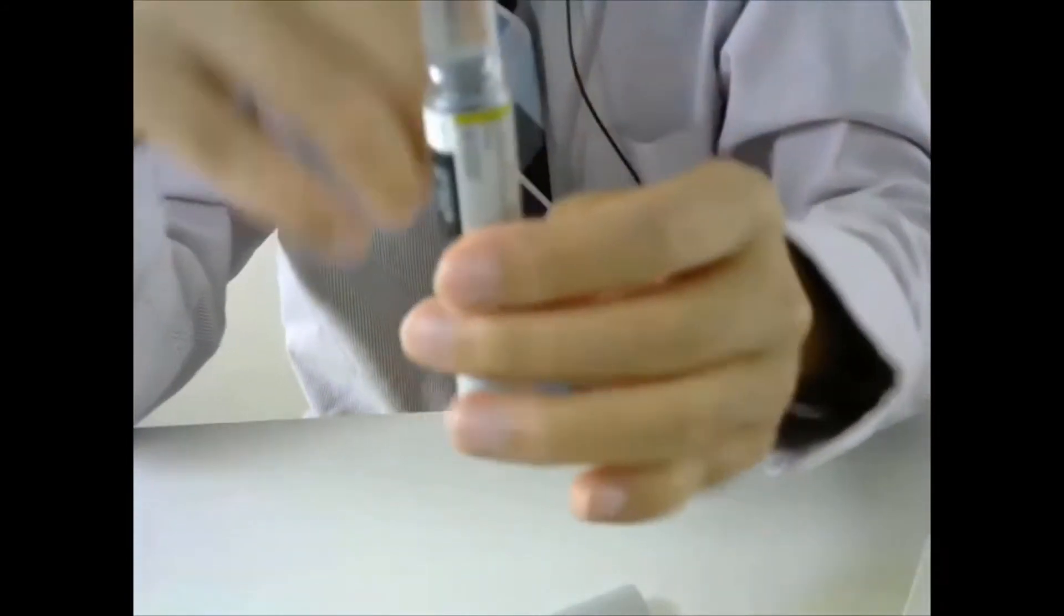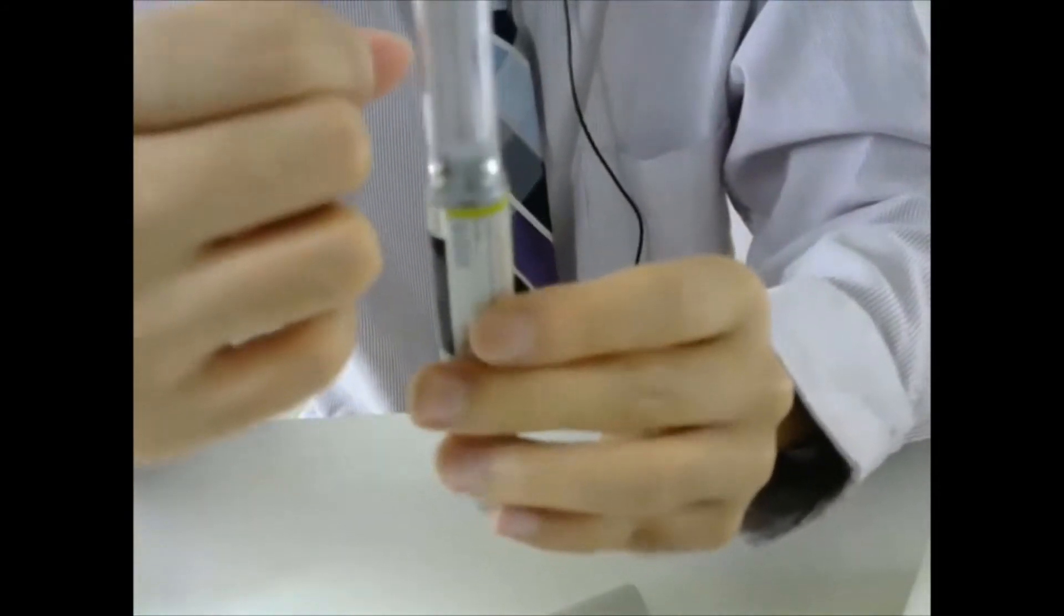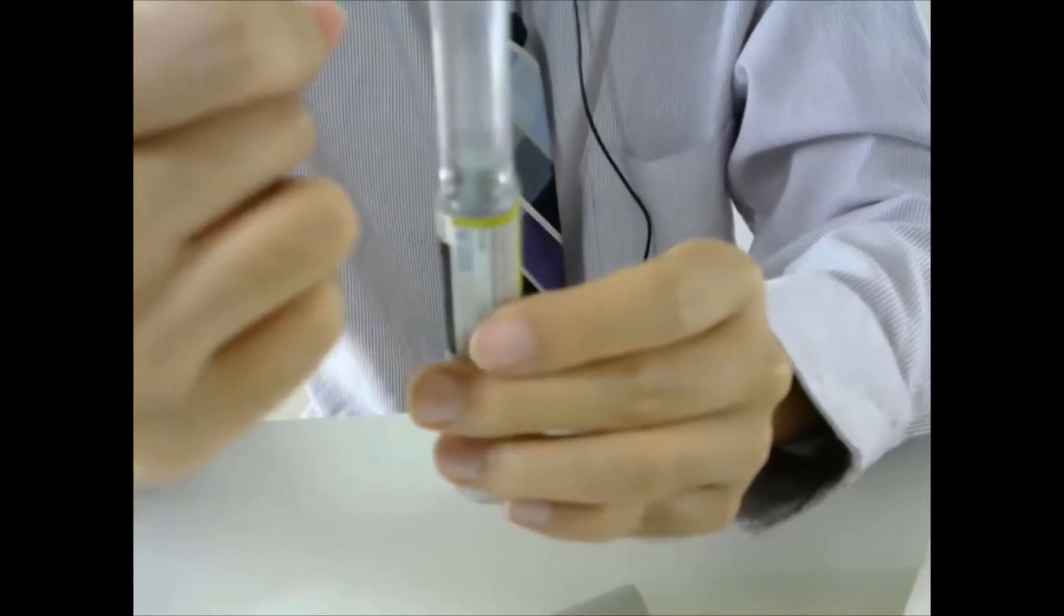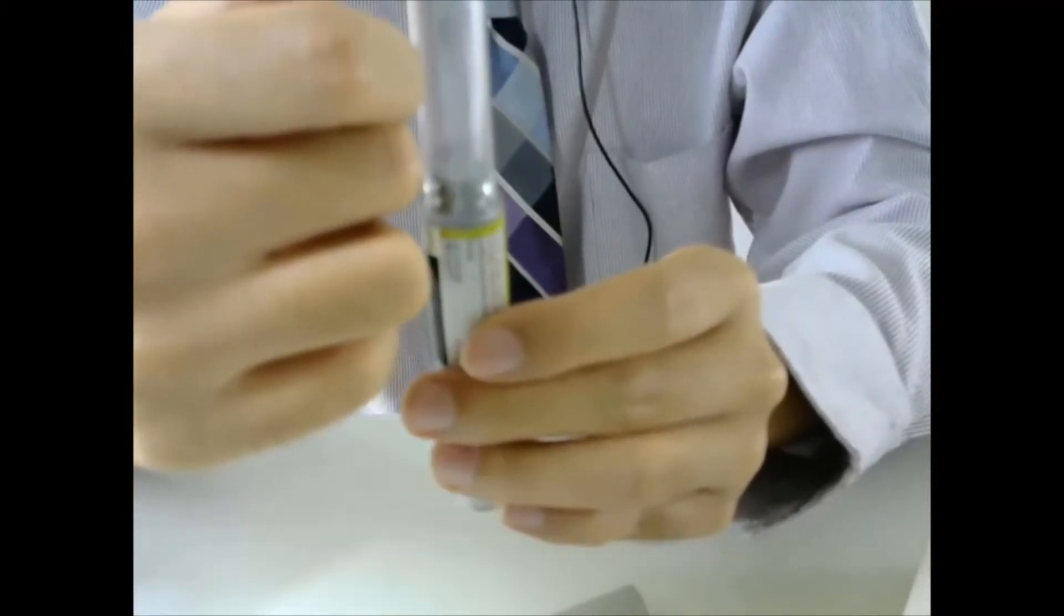And then put the pen upright. Tap on it a few times so the gas will accumulate on the top.